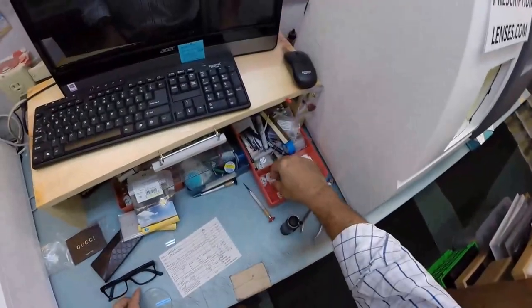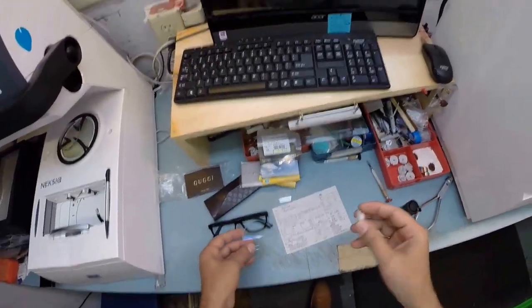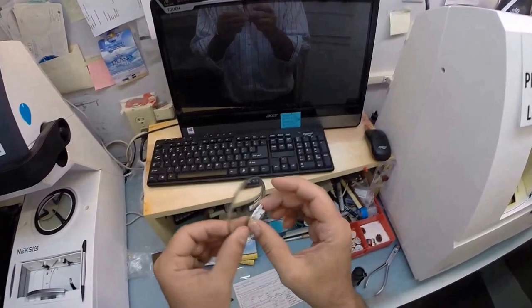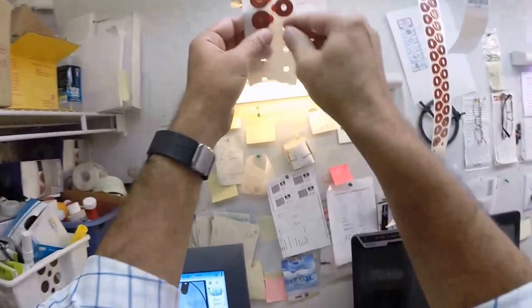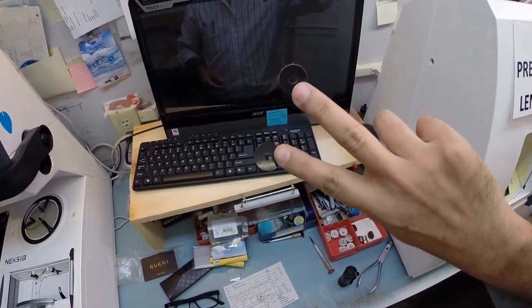Take your right lens, put it on the platform. Now this is a block, or as I like to call them, Jenny from the block. I need to attach this to your lens while it is cutting. So I need a double-sided adhesive sticker, of which I've got two left. That was close, I almost ran out.